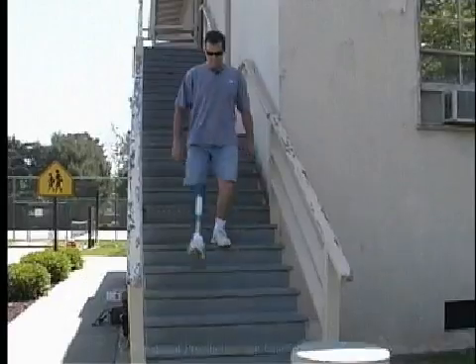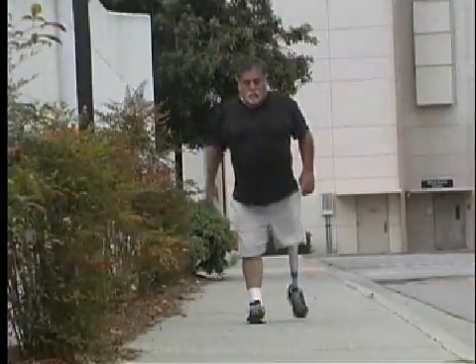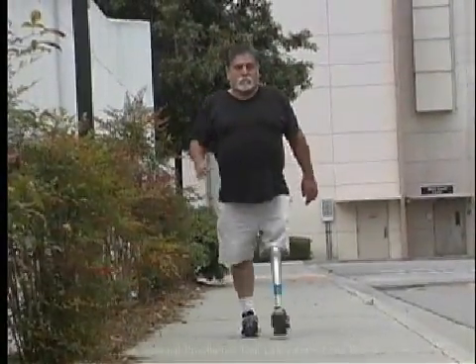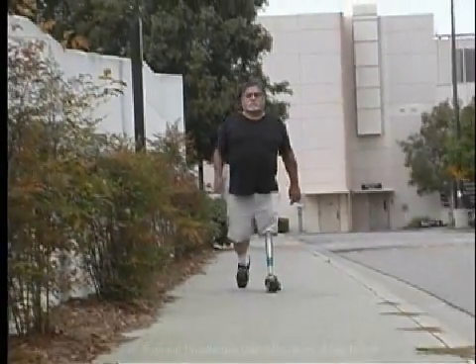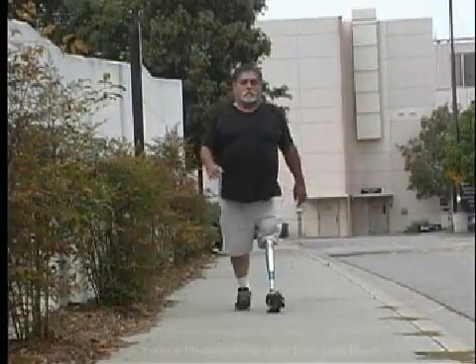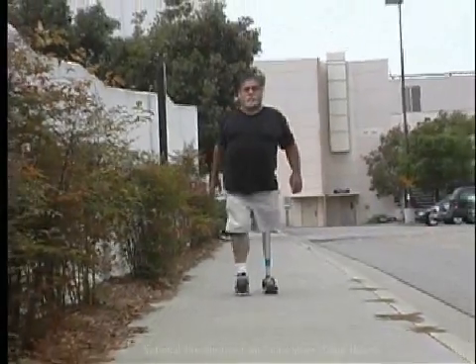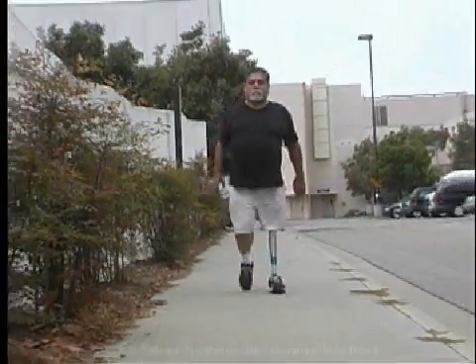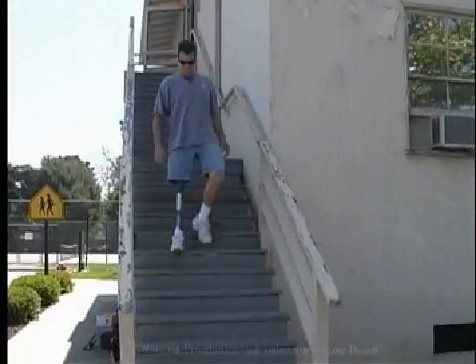Specifically, the knee may, in some cases, be placed anterior to the TKA line and still allow for a stable knee posture throughout stance phase. For example, microprocessor knees typically have a stance phase stability mode which is stable regardless of alignment.